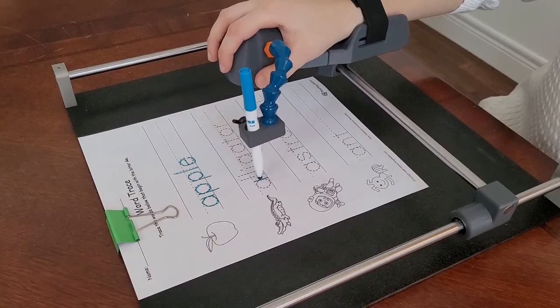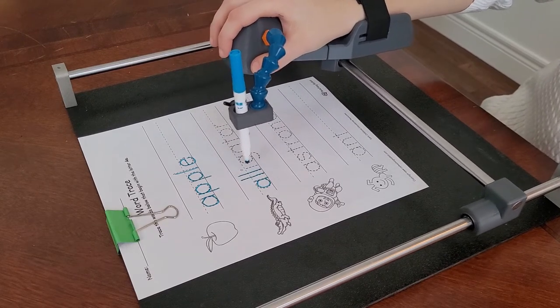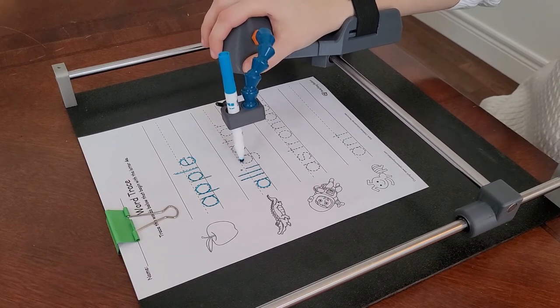For writing and drawing applications with a single sheet of paper, secure the sheet with a binder clip at the top. Tracing sheets are a fun application for children to learn how to write with Guided Hands.